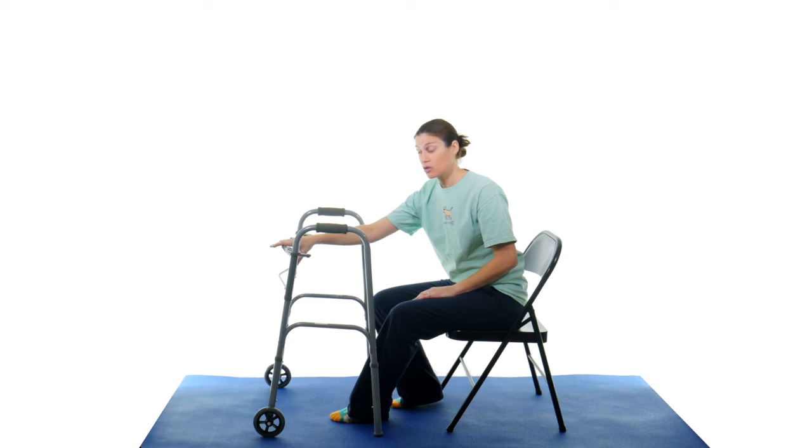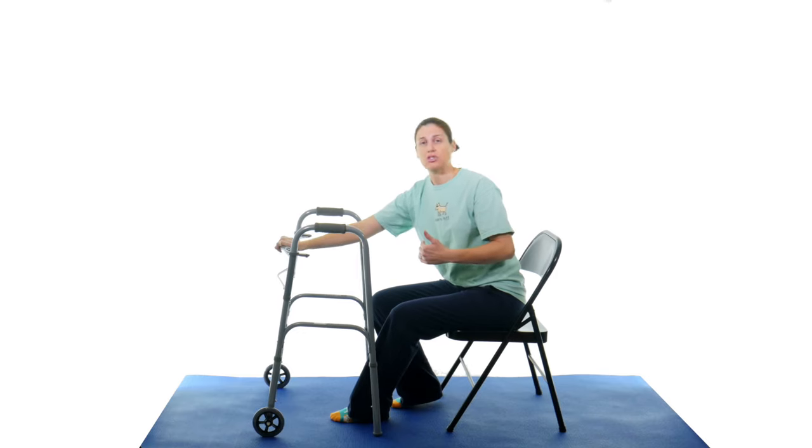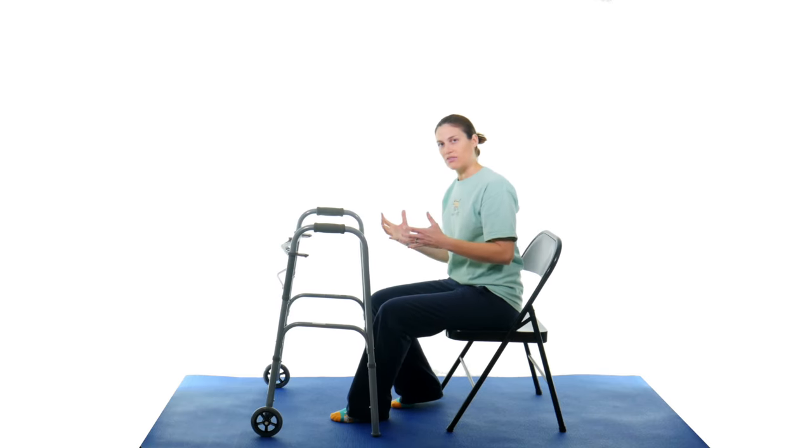You can have somebody else hold on to the walker over here. They're standing here just to make sure that they're holding it the first couple times you do it so it doesn't come swinging back towards you. So that's the couple different ways that you can do it in the safest way.